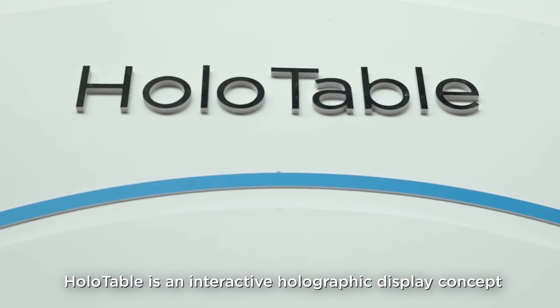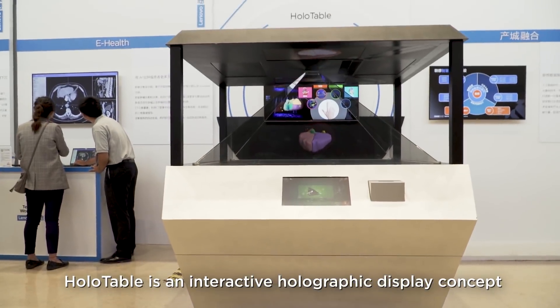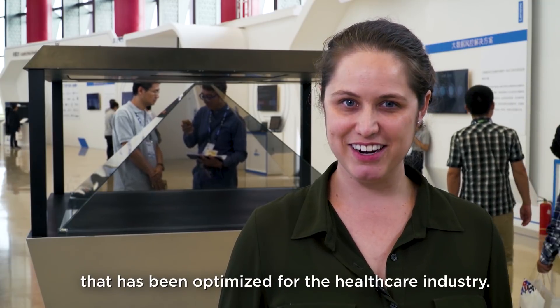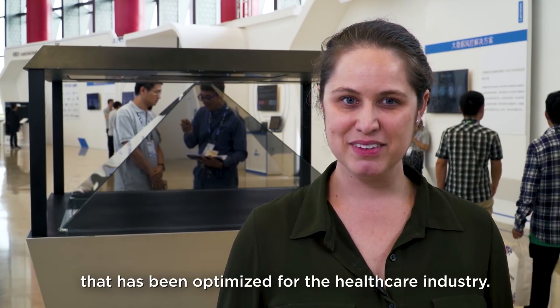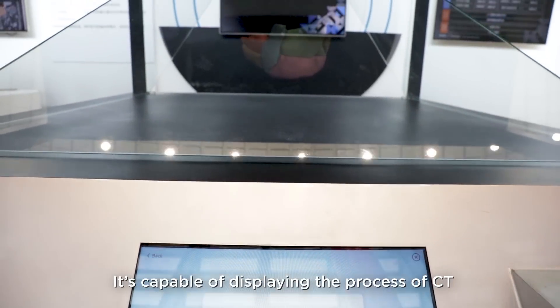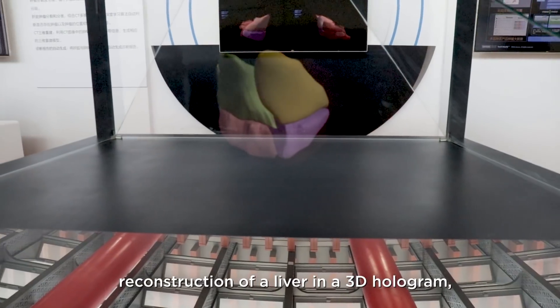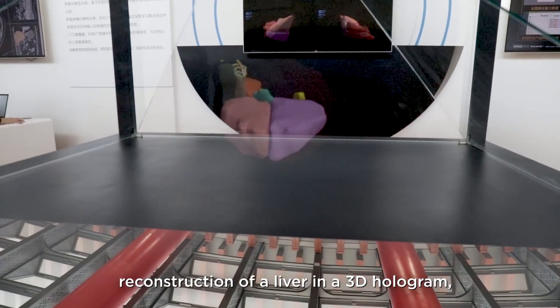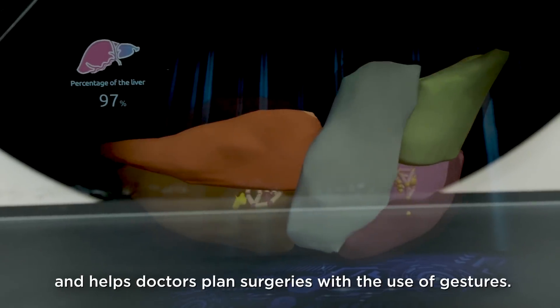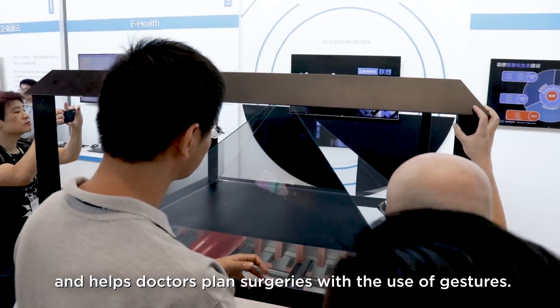Holotable is an interactive holographic display concept optimized for the healthcare industry. It is capable of displaying the process of CT reconstruction of a liver in a 3D hologram and helps doctors plan surgeries with the use of gestures.